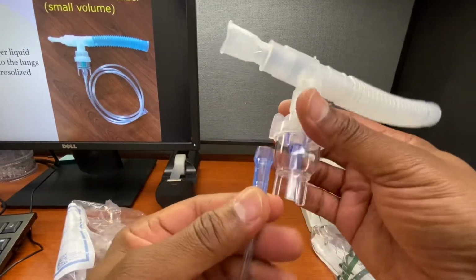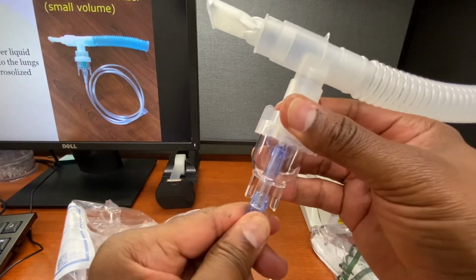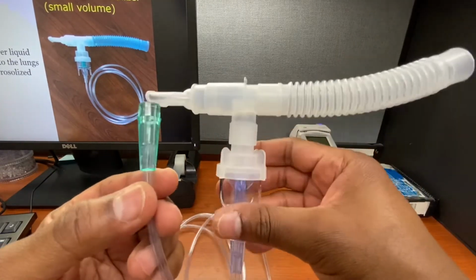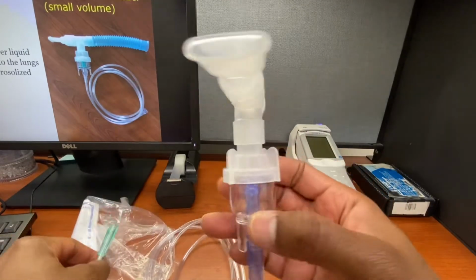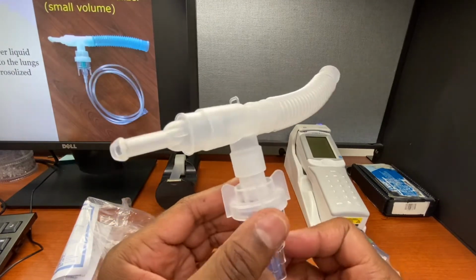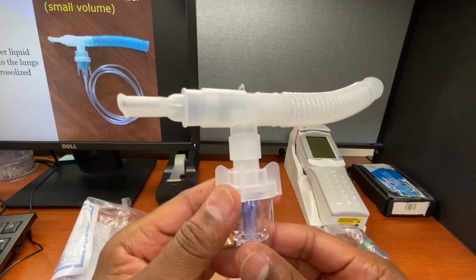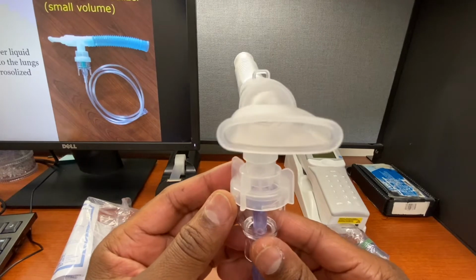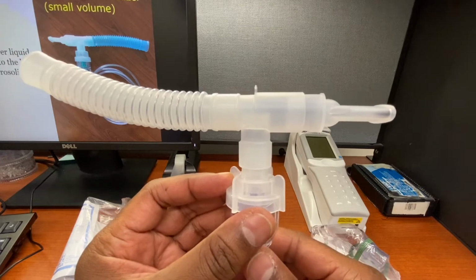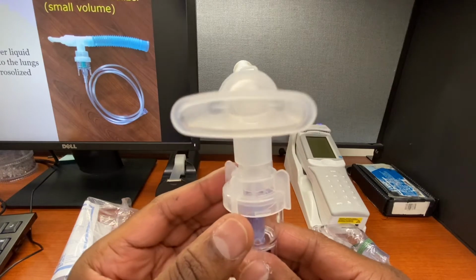Put this same color piece, because it matches the color on the inside, here. And this goes to the gas source, oxygen or air. Let's just say in this case it's oxygen, okay? So this should not be more than 8 liters. Anything higher, you just blow the medication off faster than you need to. So you don't want to do that. You want them to get the full inhaled medication for their disease process, whether it's asthma, pneumonia, or something else they're going through. And so they will take nice, slow, deep breaths with this.